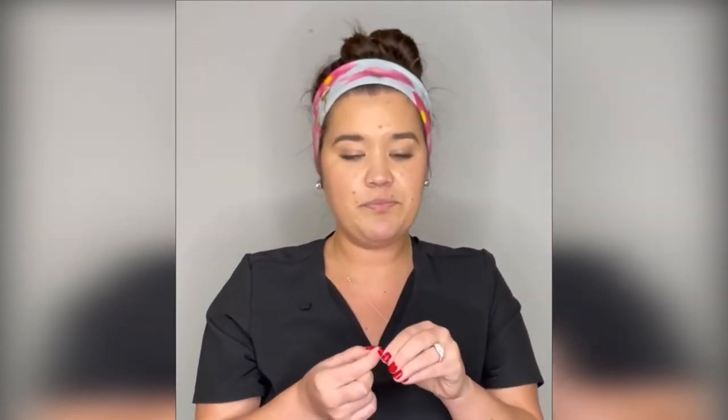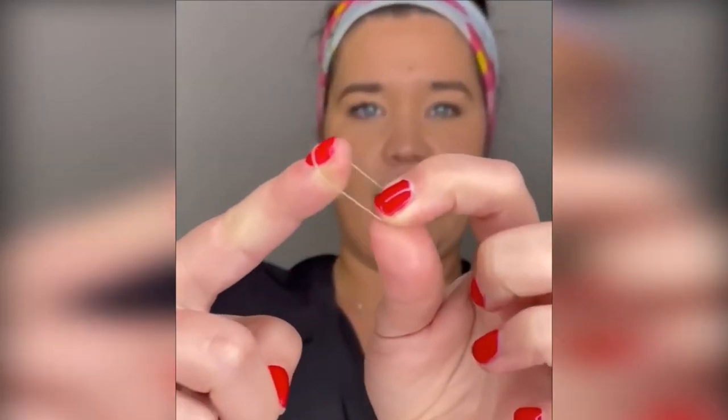You want to get one out, which I have here. This will work if you have long nails or short nails, but what I tend to recommend — I'm gonna get a little closer — is getting it around your finger like this. What I'm gonna do is use my nail, hook it on the button in the back, and then roll it off like this.